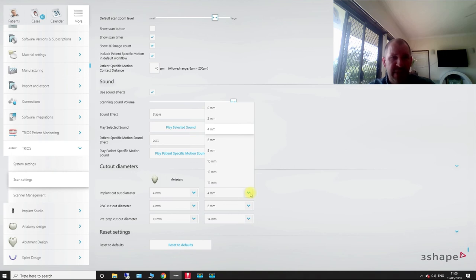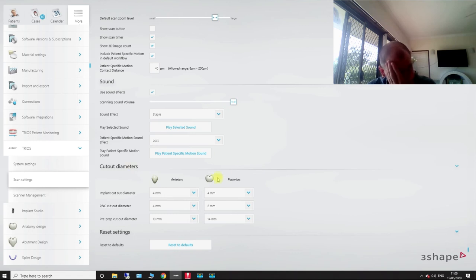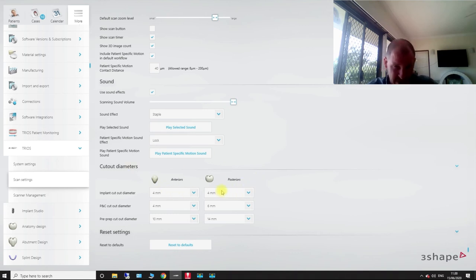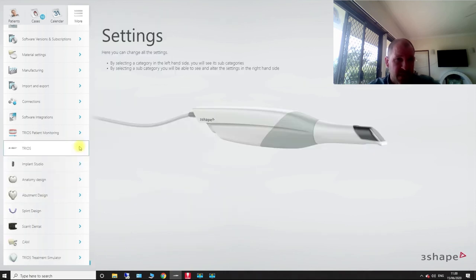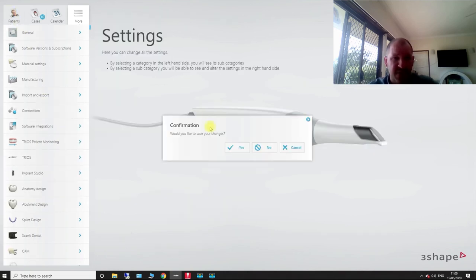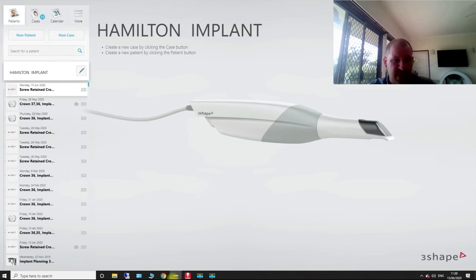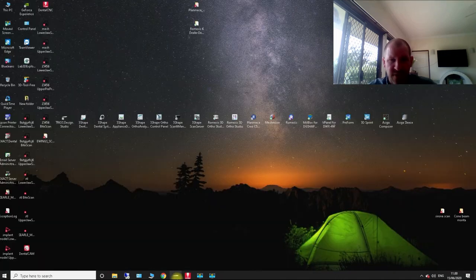These are obviously what the diameters are of that particular area. So if you wanted to have a smaller cutout diameter, that's that, or if you wanted a large, but around about four is most really good size, depending on the size of the implant that you're fitting, but I generally have the implant cutout diameter for anteriors or posteriors around about that. So yeah, so that's it, guys. Hopefully that makes sense for you. Hopefully it makes it nice and easy for you to do that workflow.